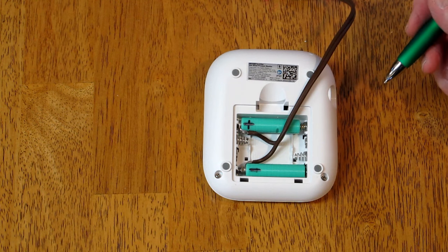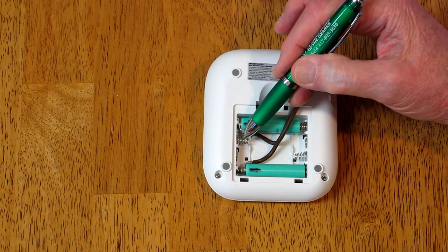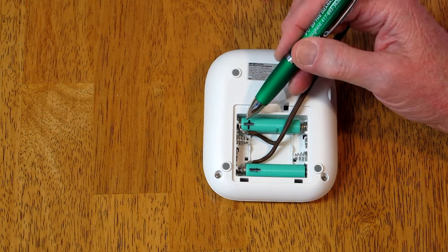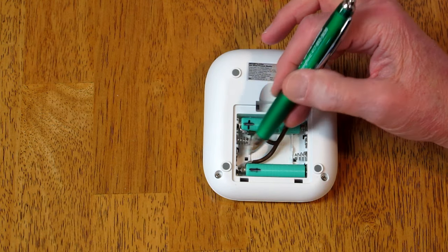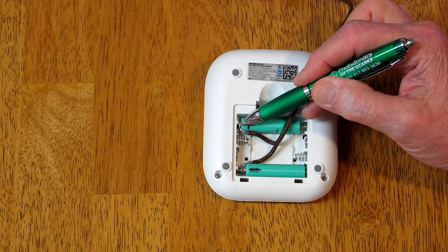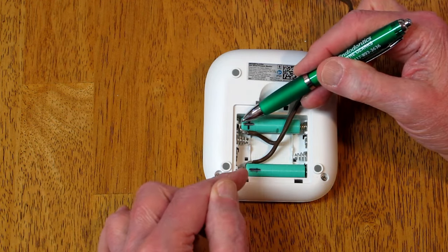If you're not familiar with electrical connections or how a battery box works in one of these gadgets: the batteries are installed in alternating positions and the negative side always goes against the spring. So the end of the first battery goes to the circuit board, and then it connects over to the next one, and so on. Connected in series — four batteries at one and a half volts each — we have a total of six volts.